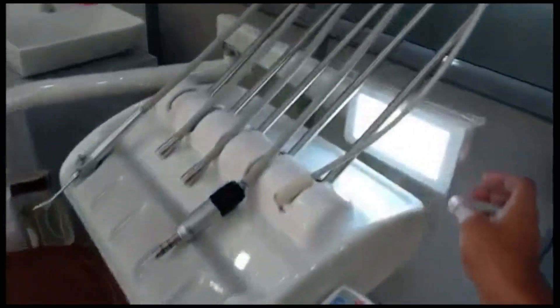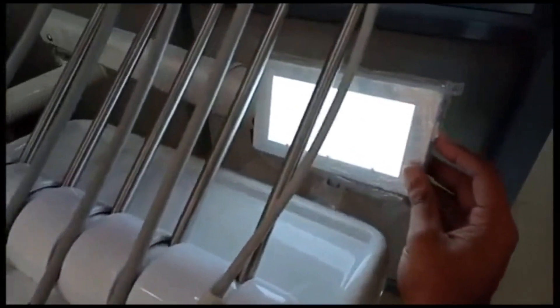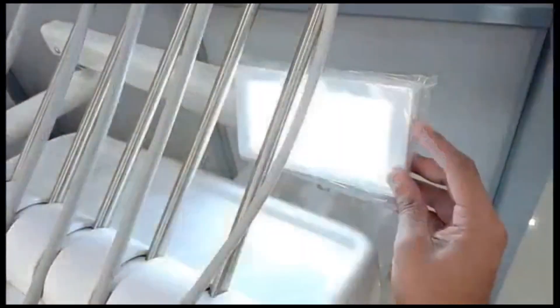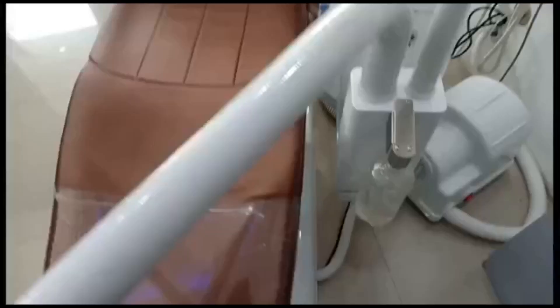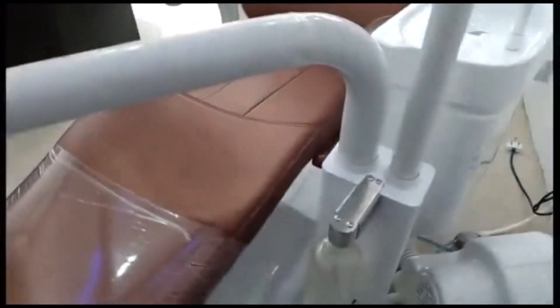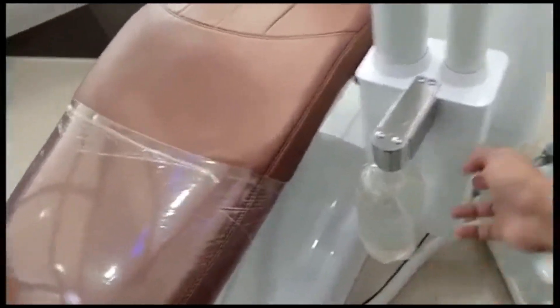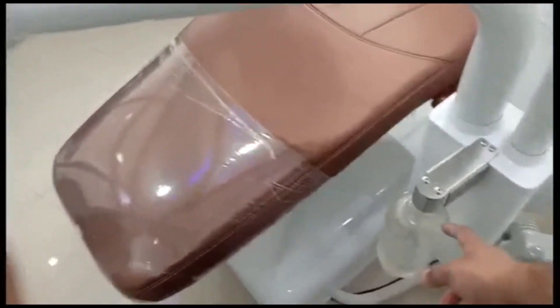This device is used to visualize X-rays. If we have an X-ray film, we can view it here — there is a switch over here for that purpose.